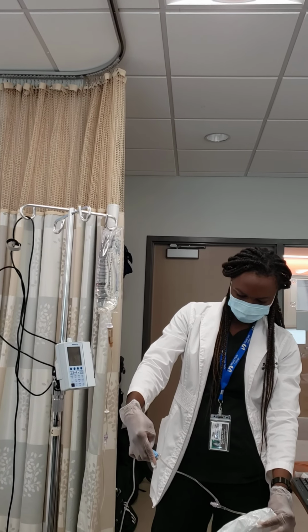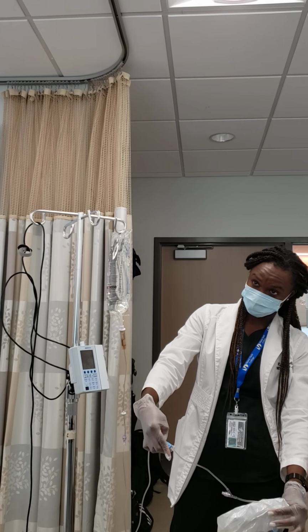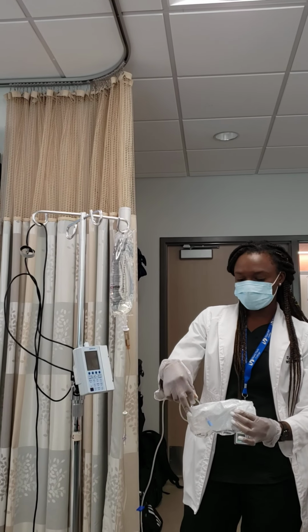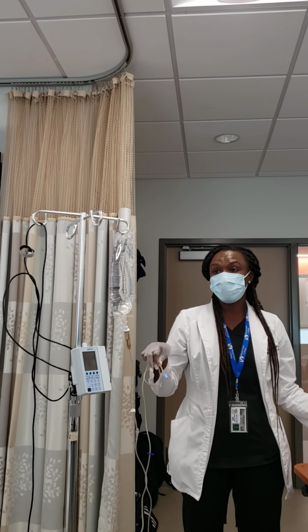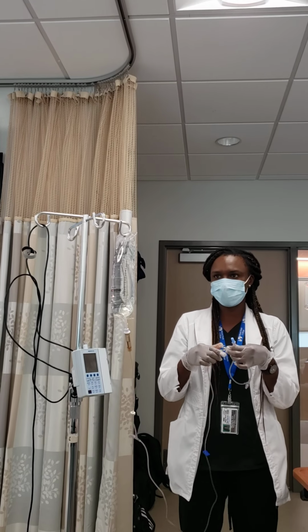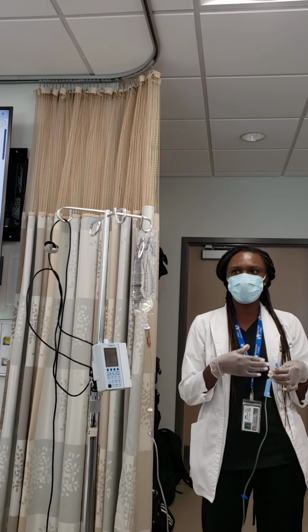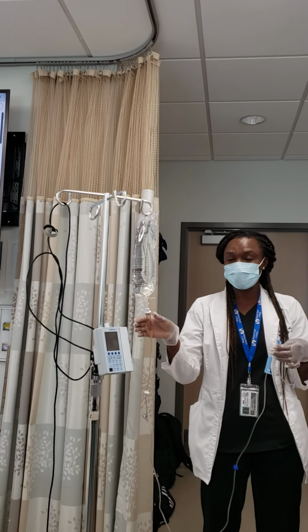Let's say, for instance, the way you're doing it right now, you're kind of losing fluid. So let's say the patient was ordered to get the whole bag. Now you're losing fluid. Exactly. But I was showing you because the way I did it, I spiked it without clamping it. To prevent that and save more fluid, you clamp it and then you spike, and then you press the chamber, fill it first before you actually open it, and that will prevent you from having air bubbles. But you see all of that only because I didn't clamp it.